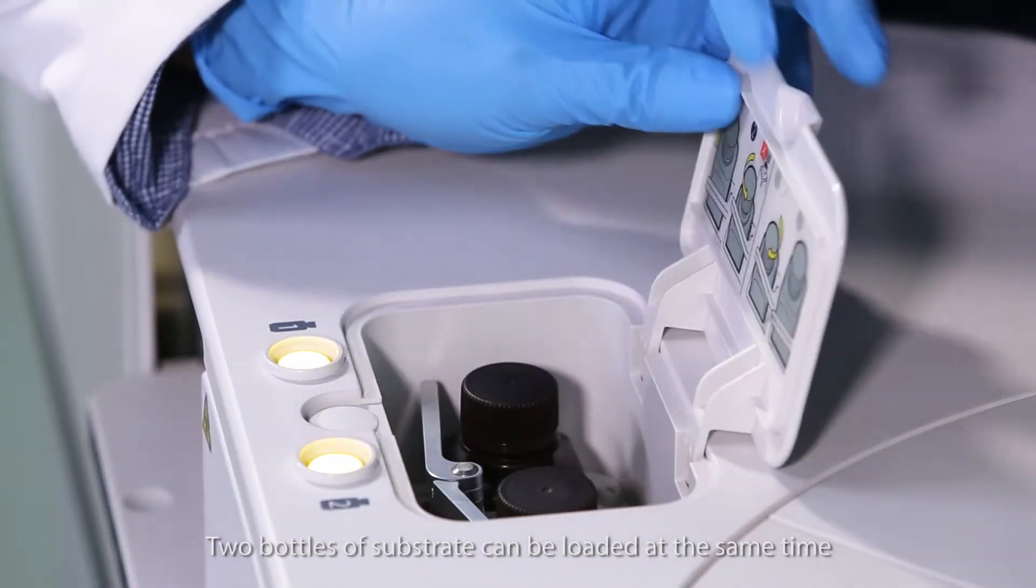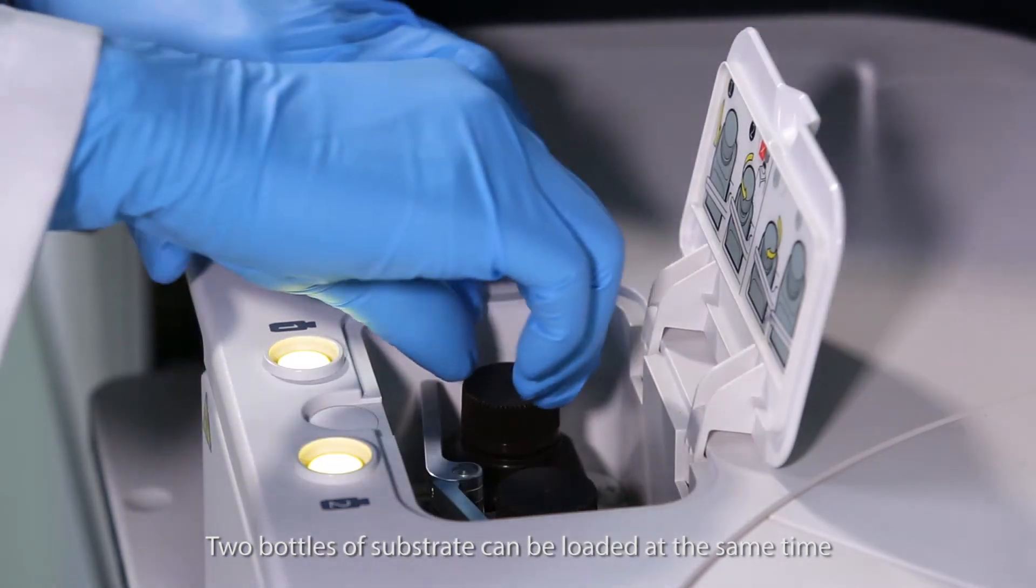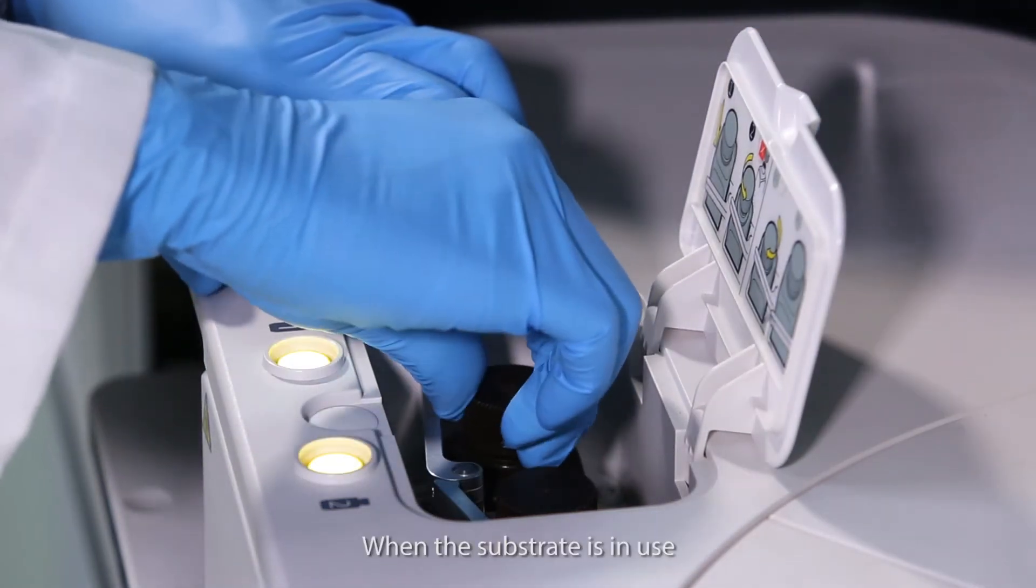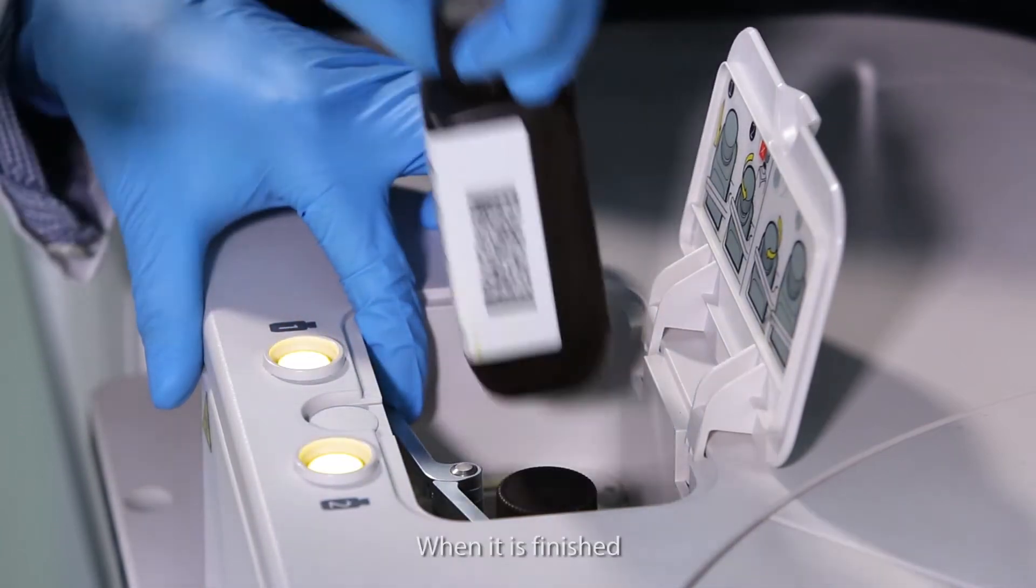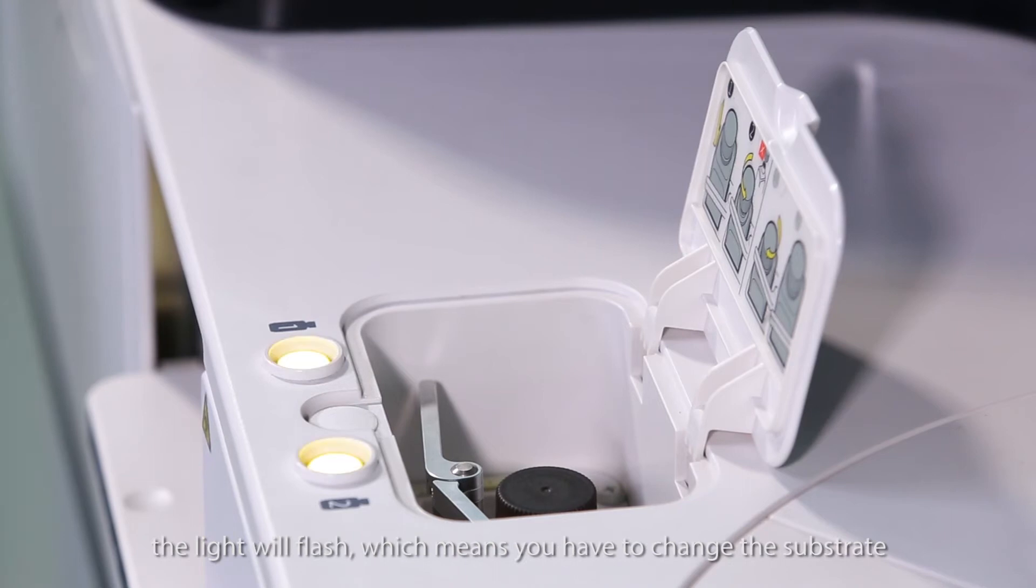Two bottles of substrate can be loaded at the same time. When the substrate is in use, the corresponding yellow indication light will be on. When it is finished, the light will flash, which means you have to change the substrate.